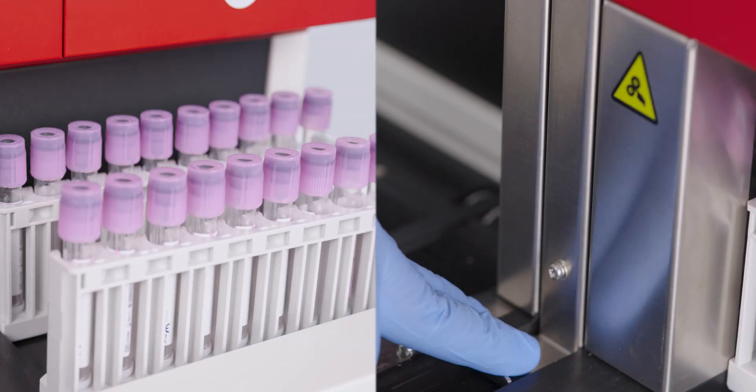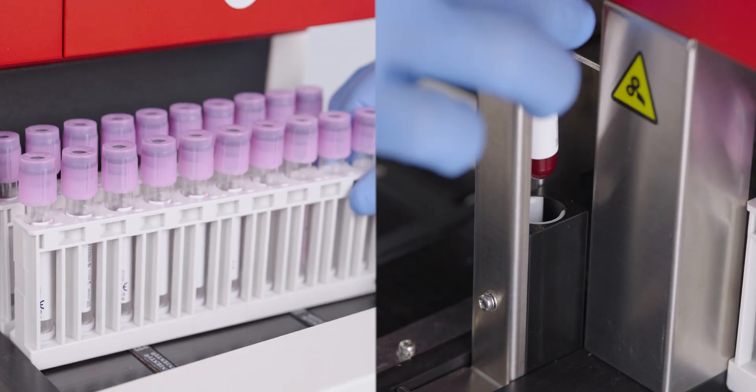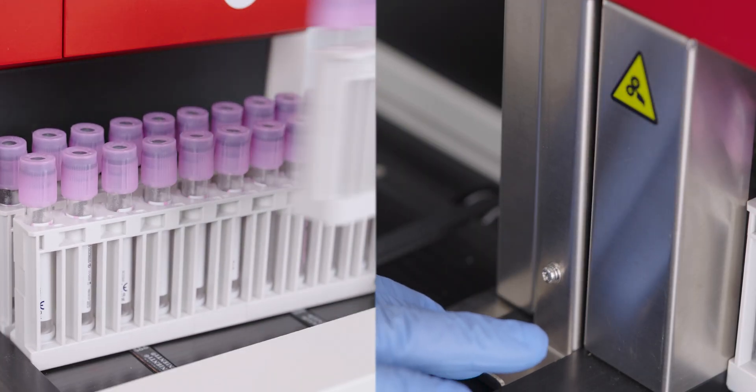With dual sampling modes and an independent emergency position, samples can be added anytime during the run.